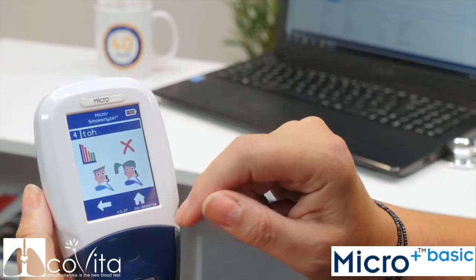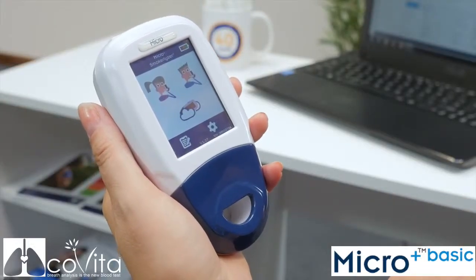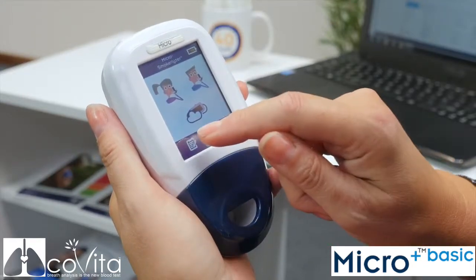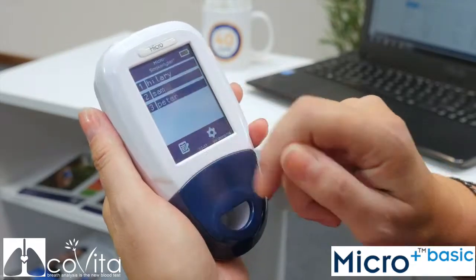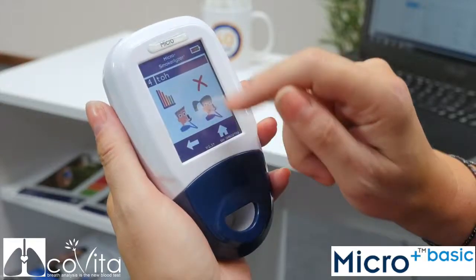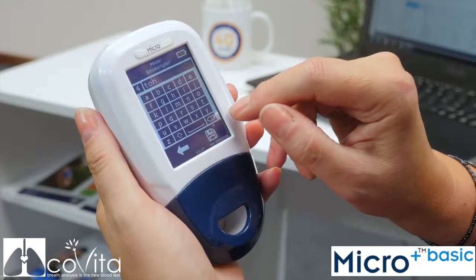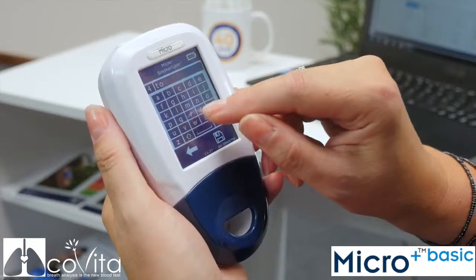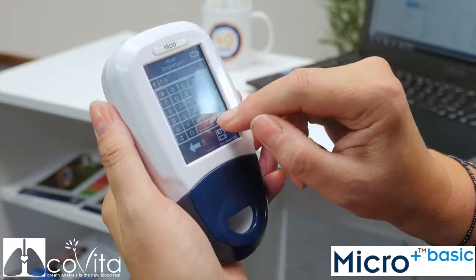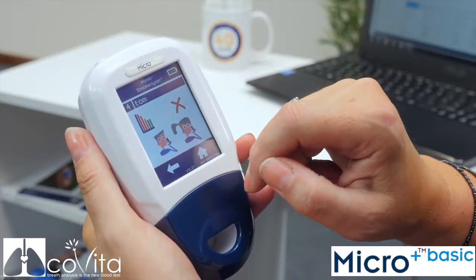You will now be able to see a graph of the patient's saved results. To edit an existing patient, click on Register and then select the patient you wish to modify. To change their name, click on their name at the top of the screen and use the keypad to edit. Once you are happy with the changes, click Save to register them or the back arrow to cancel.